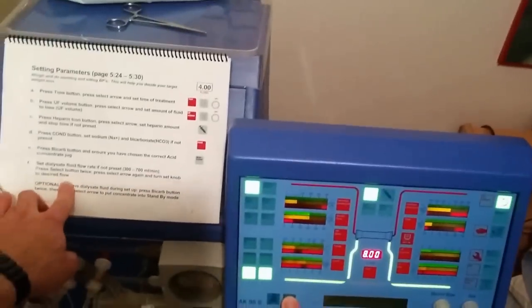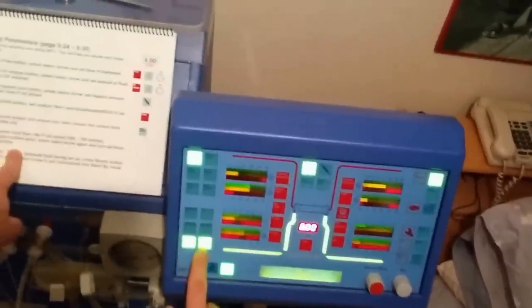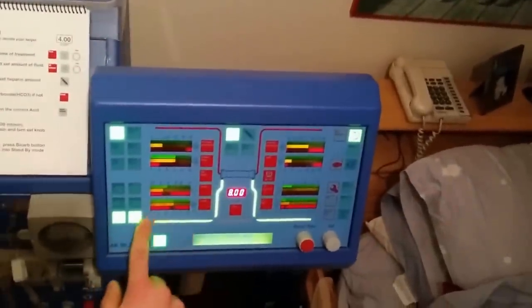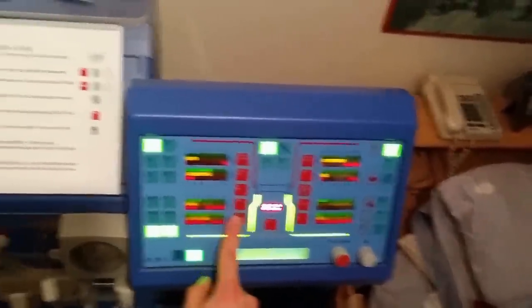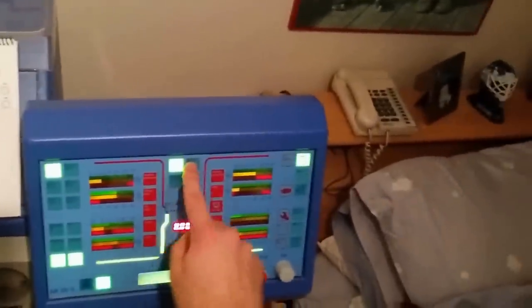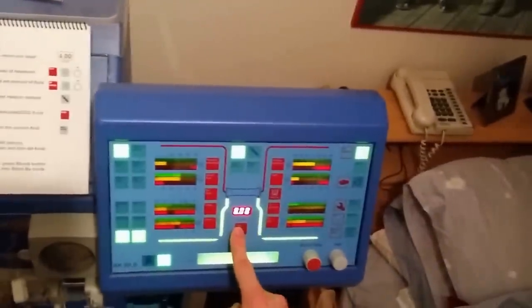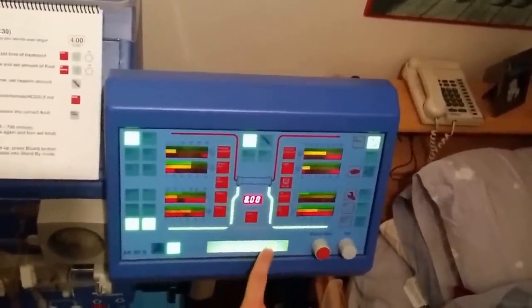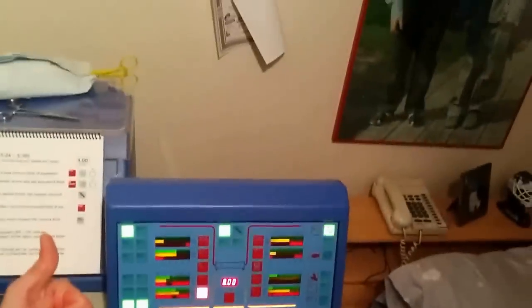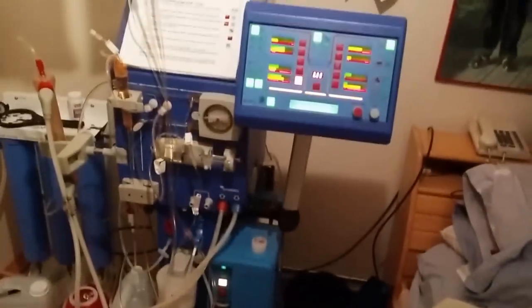There's a user manual on my left hand — there are just a few items we want to check. They're already preset, but I check to make sure the time is set — as you can see it's set to eight hours. There's water removal, set to usually two to two-and-a-half kilos, which I adjust later depending on how much water we want to take off. Various parameters like conductivity — these all sound complicated, but through your training you'll figure it all out. We're all good to go. Hopefully it didn't look too daunting — it shouldn't be; you'll get the hang of it.